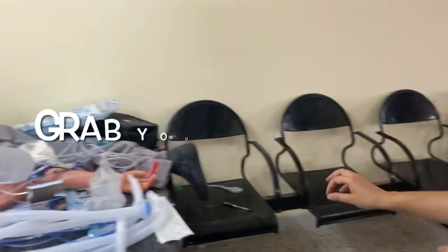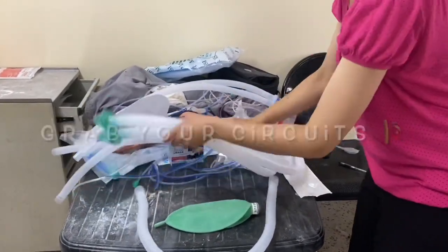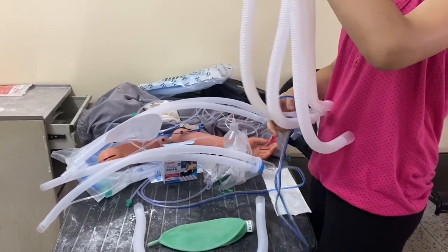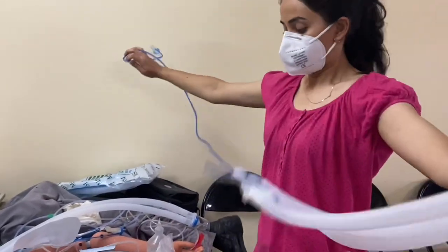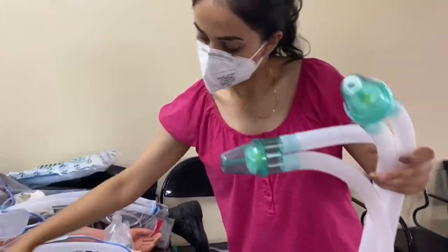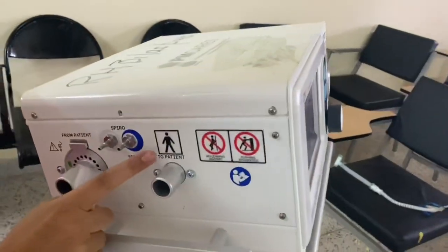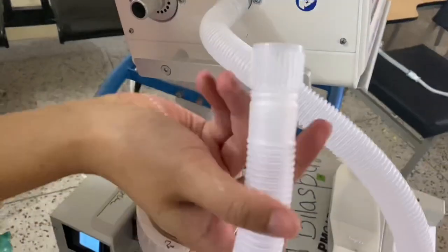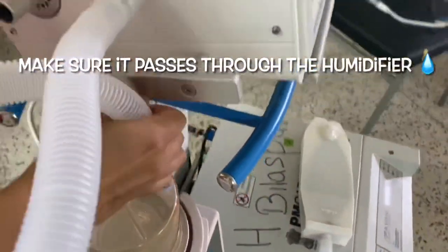After the humidifier, it's time to attach the inspiratory and the expiratory limb. The limbs are formed by these white flexible tubing with the water traps. First, we attach the inspiratory limb — here you can see we have the mark 'to the patient.' Attach one side to this port and the other to the humidifier by following the directional arrows.